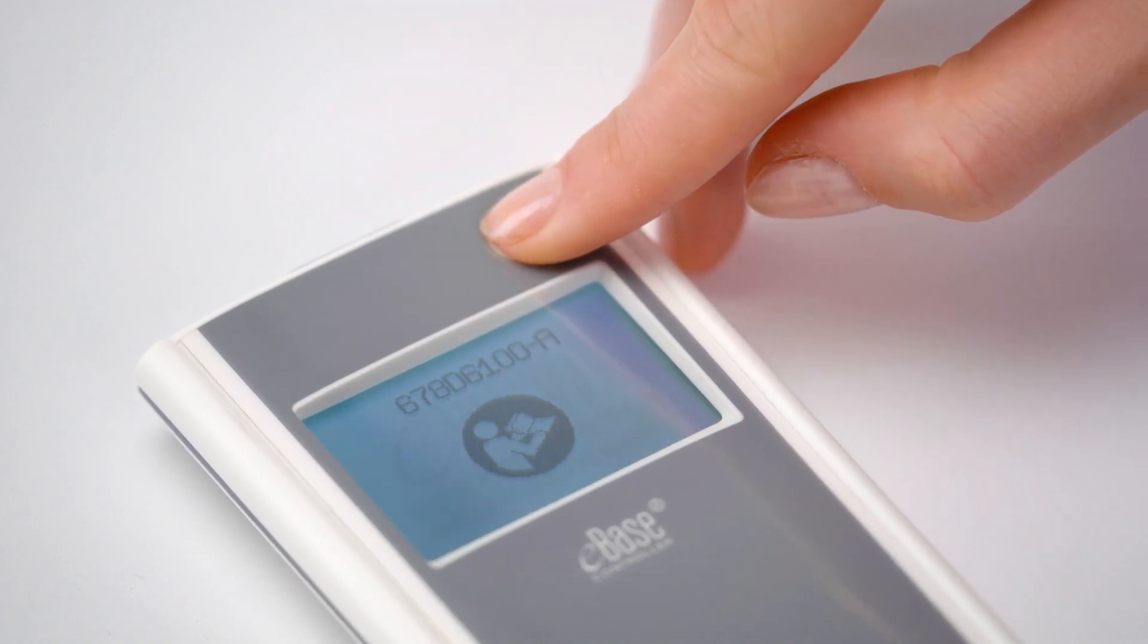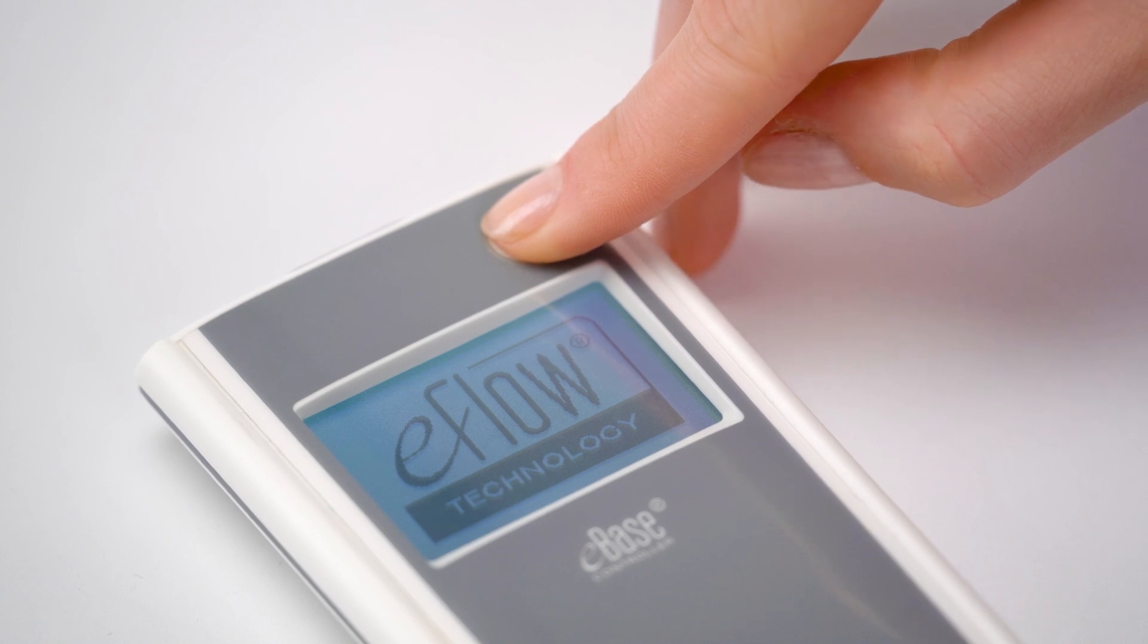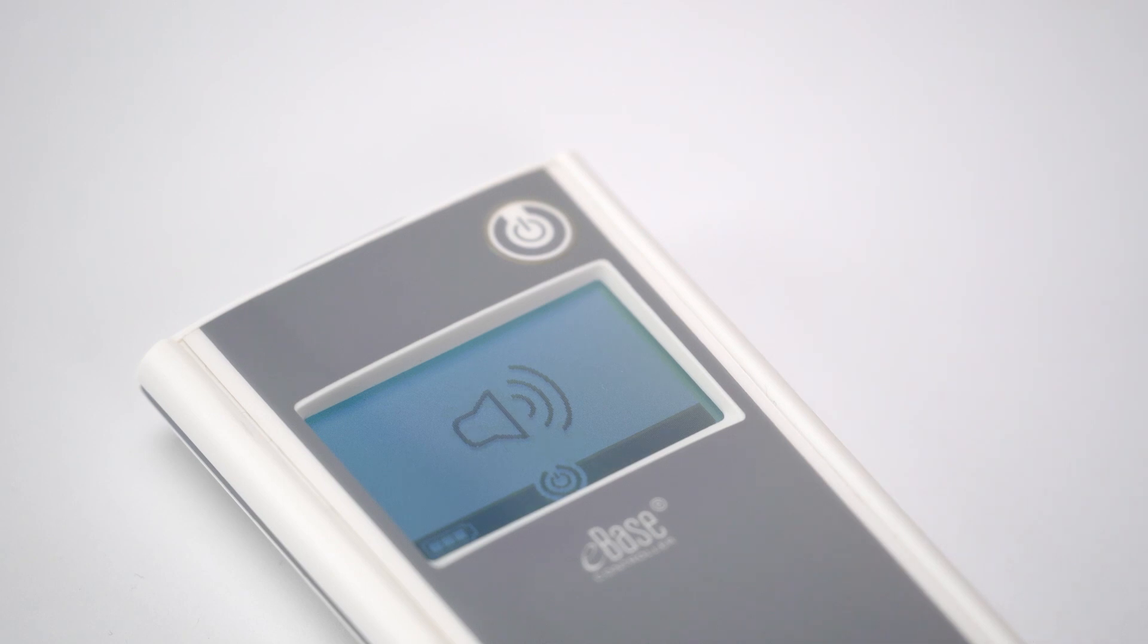The controller must be switched off. Enter the settings mode by pressing and holding down the on-off button until the settings screen appears.